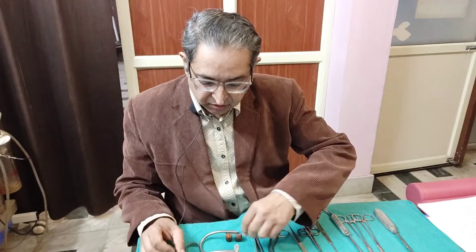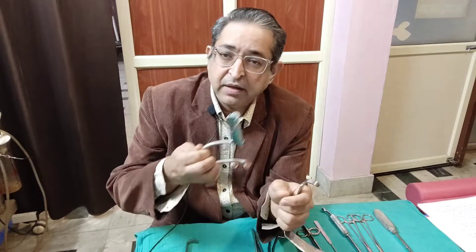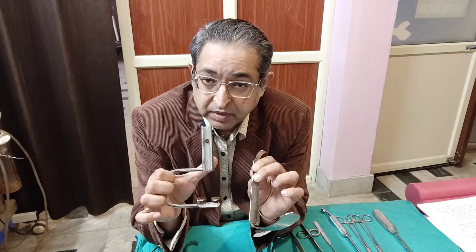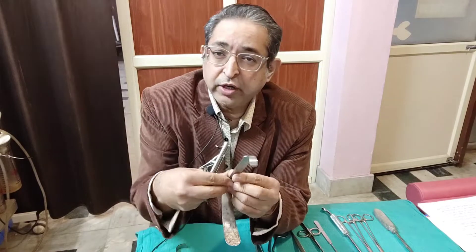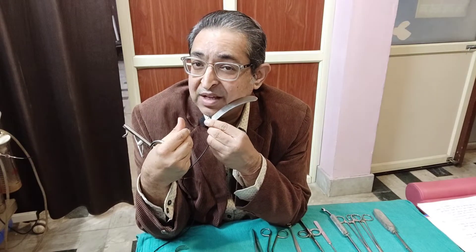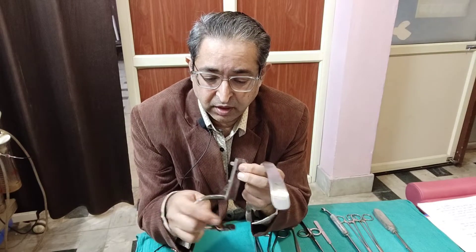Let us start with the very first instrument used in tonsillectomy. These two instruments are combined into one. This is the Boyle's Tongue Depressor and this is the Davis Mouth Gag, so it is called the Boyle's Davis Mouth Gag. The parts include this tongue blade, which comes in various sizes. You choose the size according to the age of the patient, and the correct distance between the chin and the oral cavity is measured — this length should not exceed beyond the oral cavity. That determines the appropriate size of the tongue blade to insert into this mouth gag.